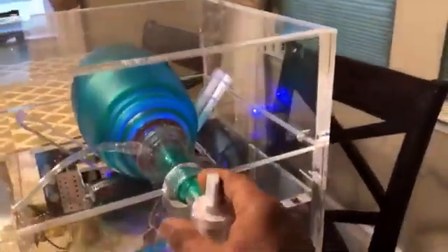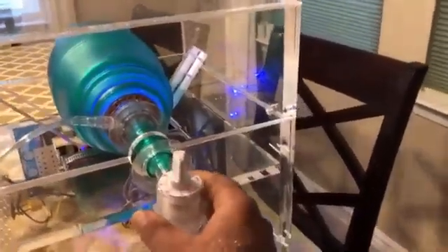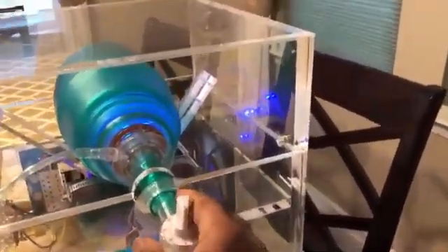It is based on the Ambu bag, which is used in hospitals. The device is able to be controlled by a computer.